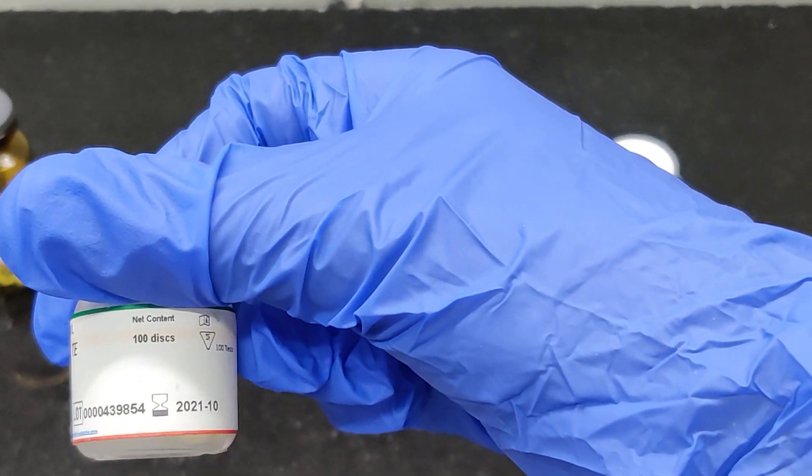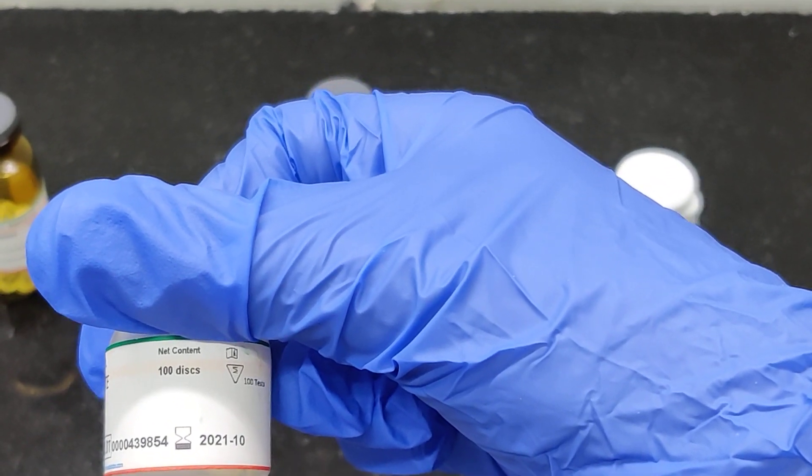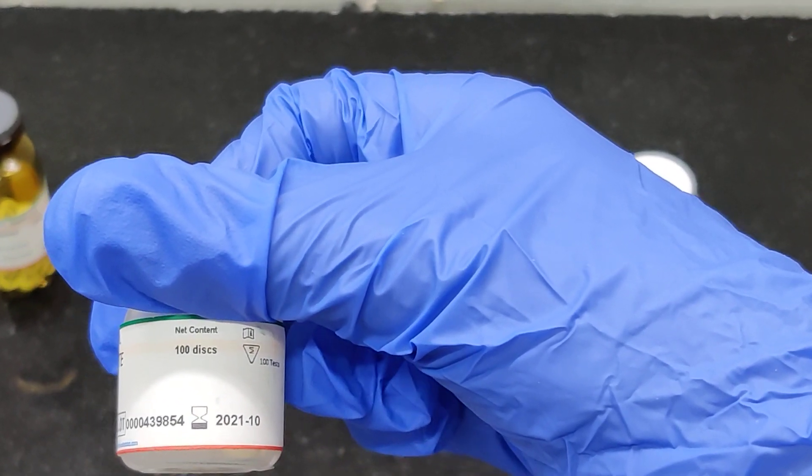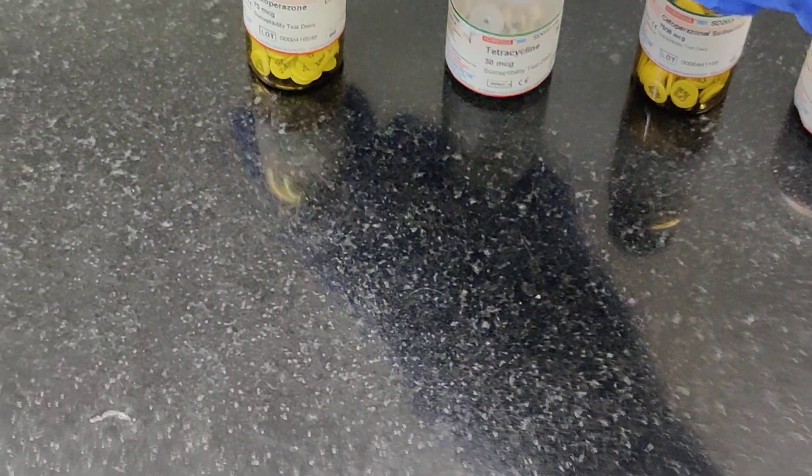The expiry date is also mentioned on the bottle, and it's very important to ensure that you are not using expired discs. Otherwise, your results are not going to be appropriate.